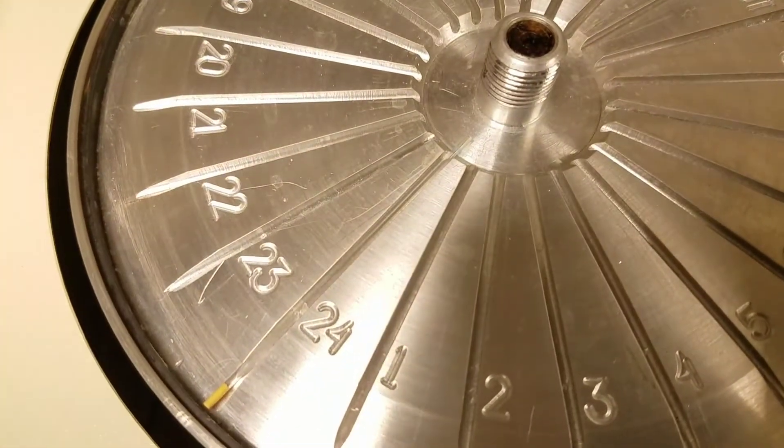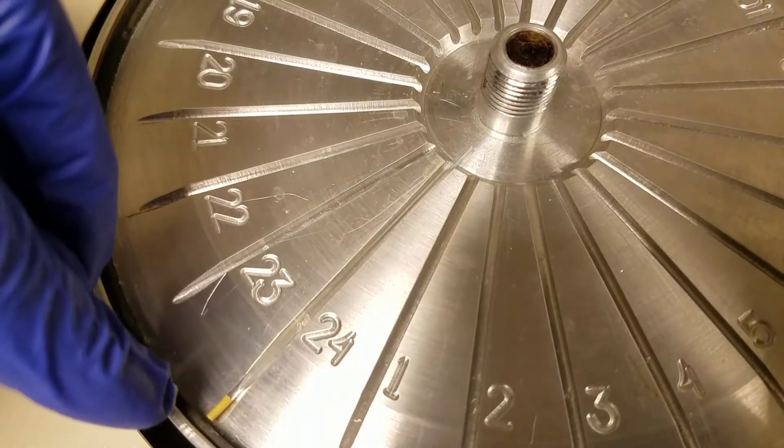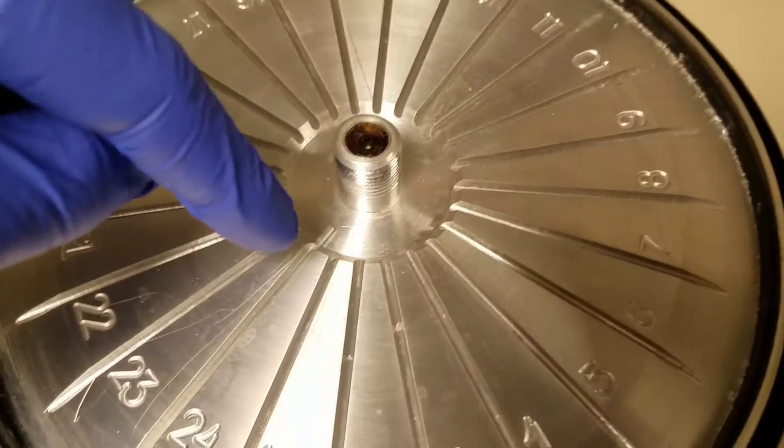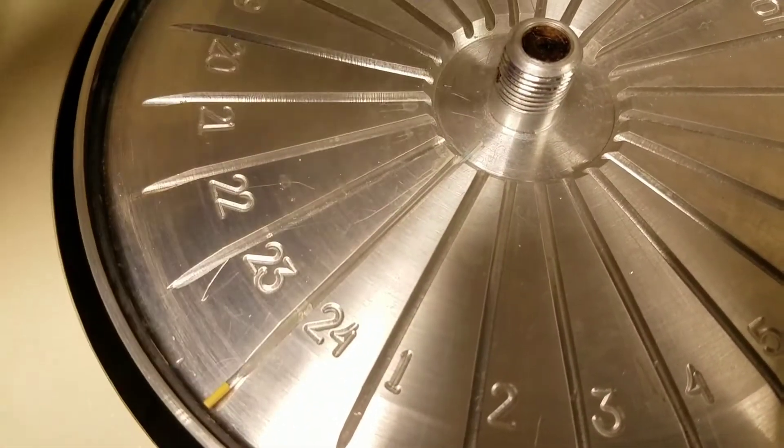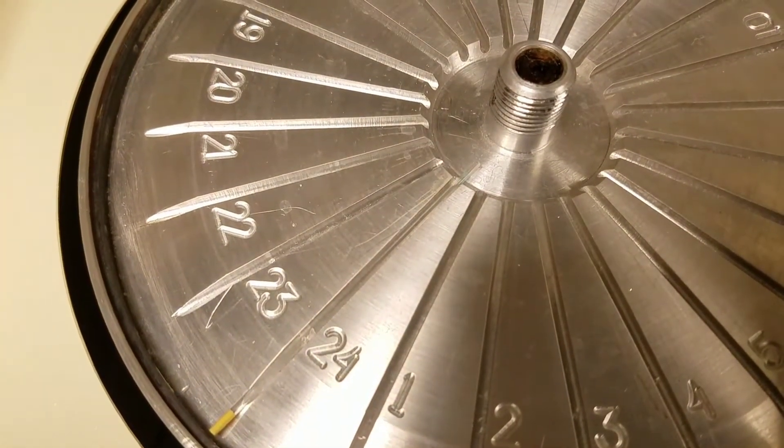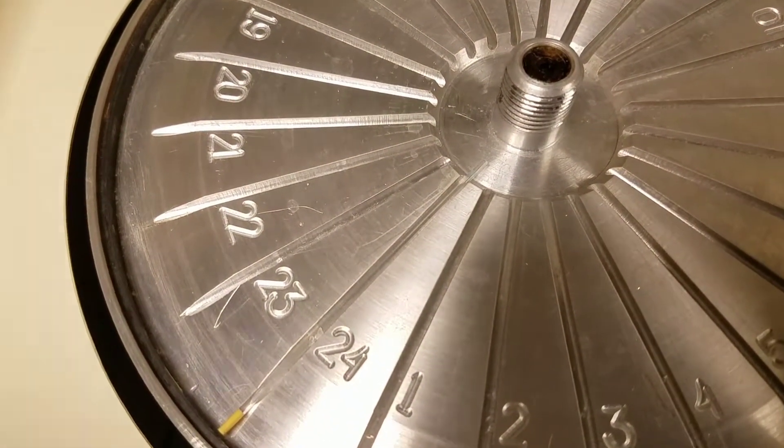Another thing, which I may or may not have messed up on earlier, is you want to make sure and put the stoppered end on the outside. If you put it towards the middle, it'll migrate to the end. And that's actually what happened on this one. Because the clay started out here, and then when that happens, you'll get blood everywhere, which is not good.